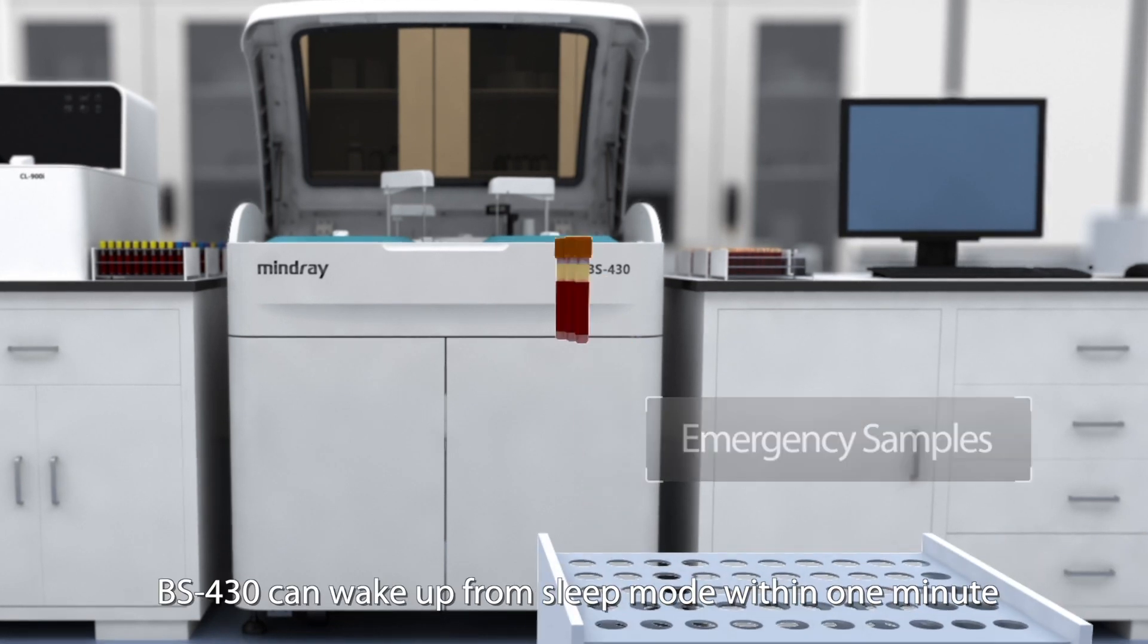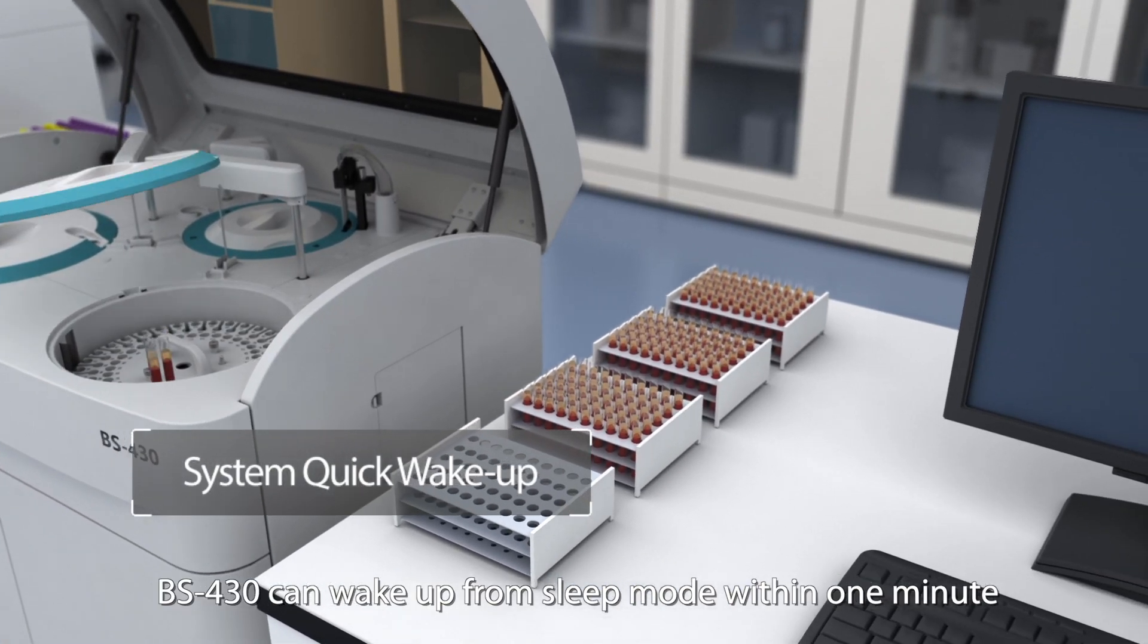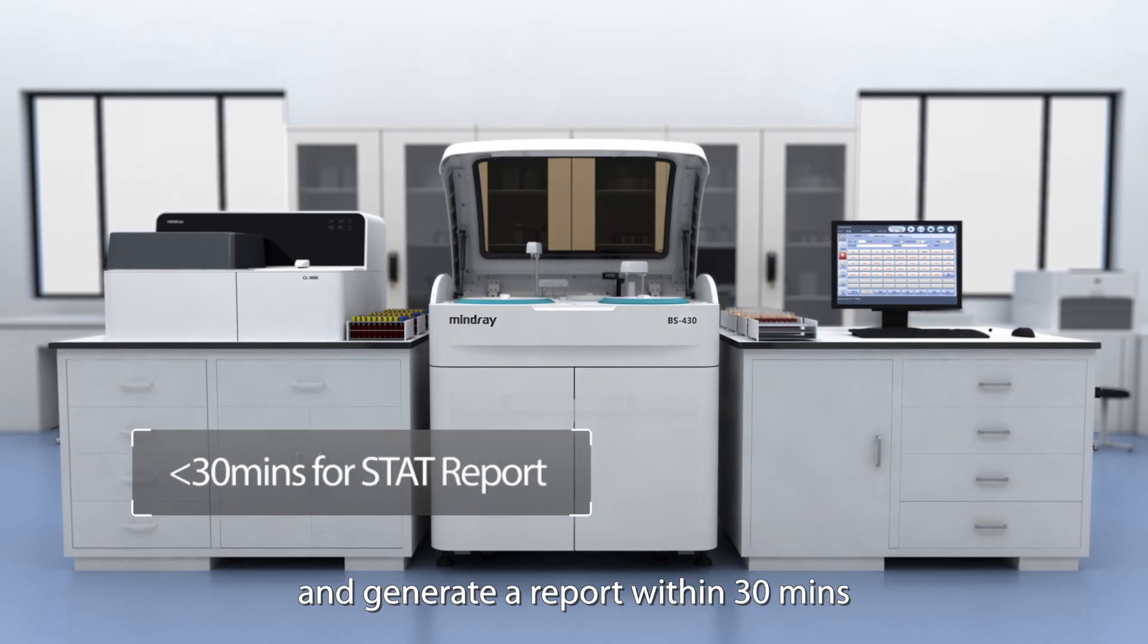For emergency tests, BS430 can wake up from sleep mode within one minute and generate a report within 30 minutes.